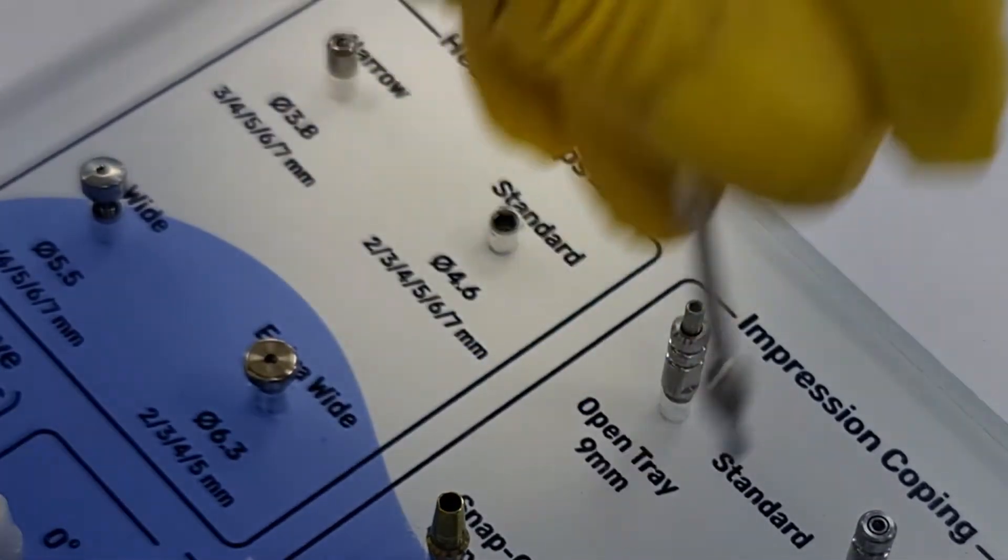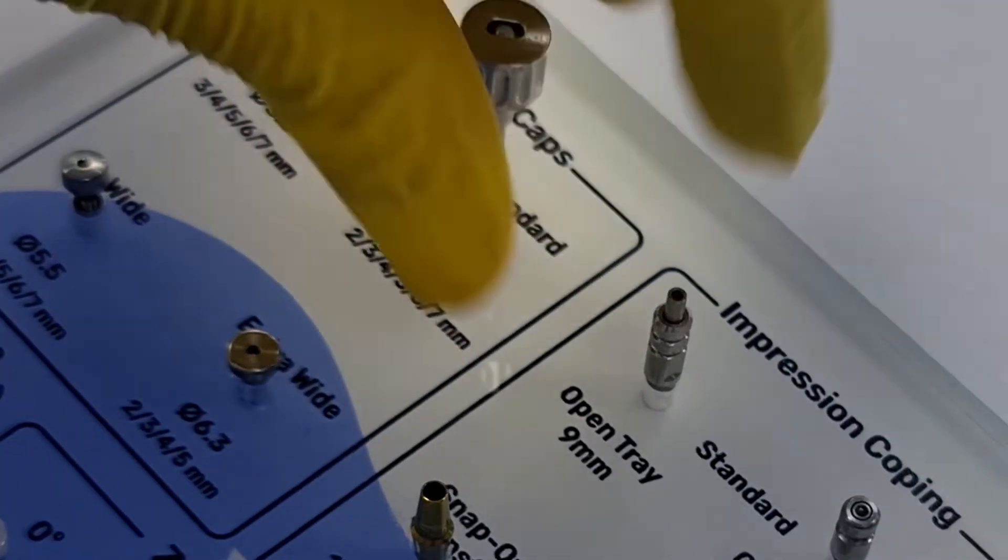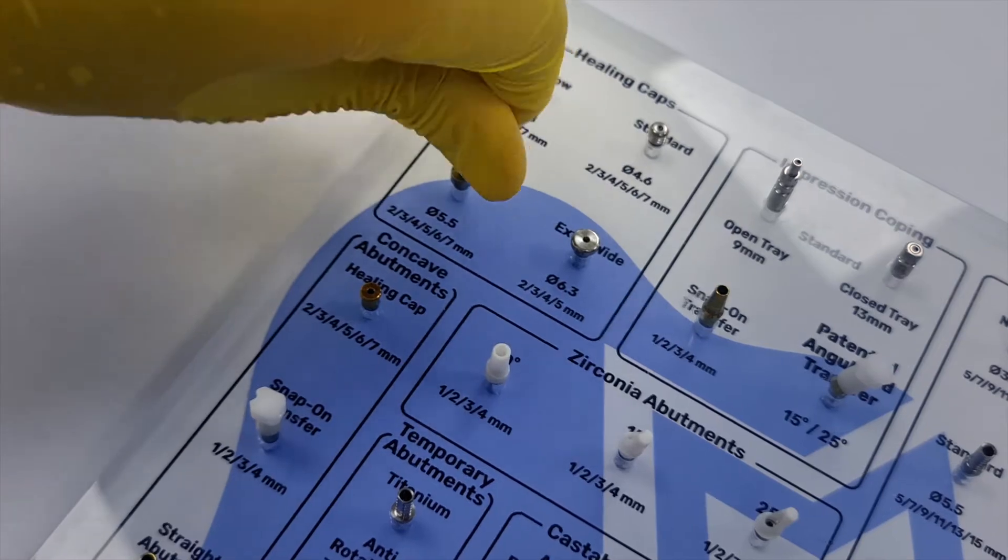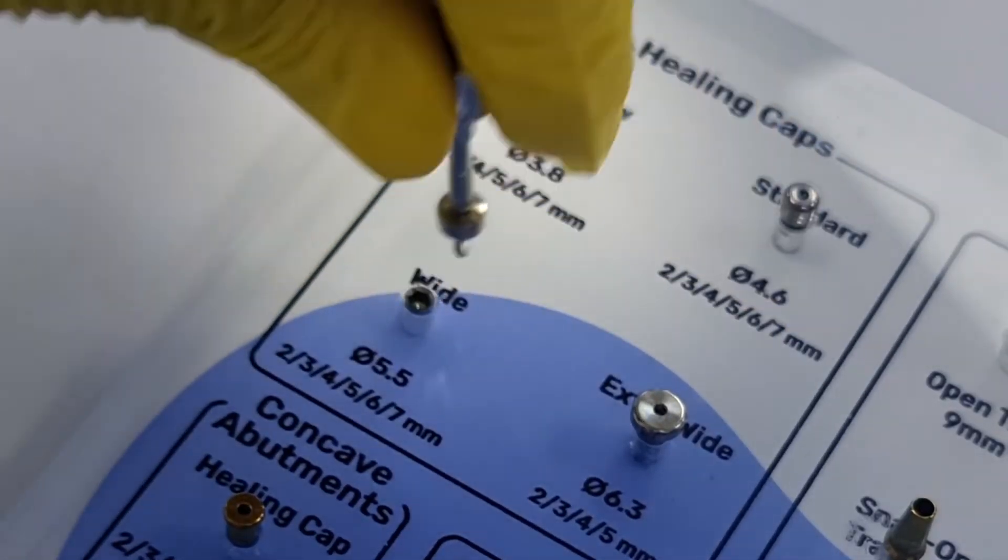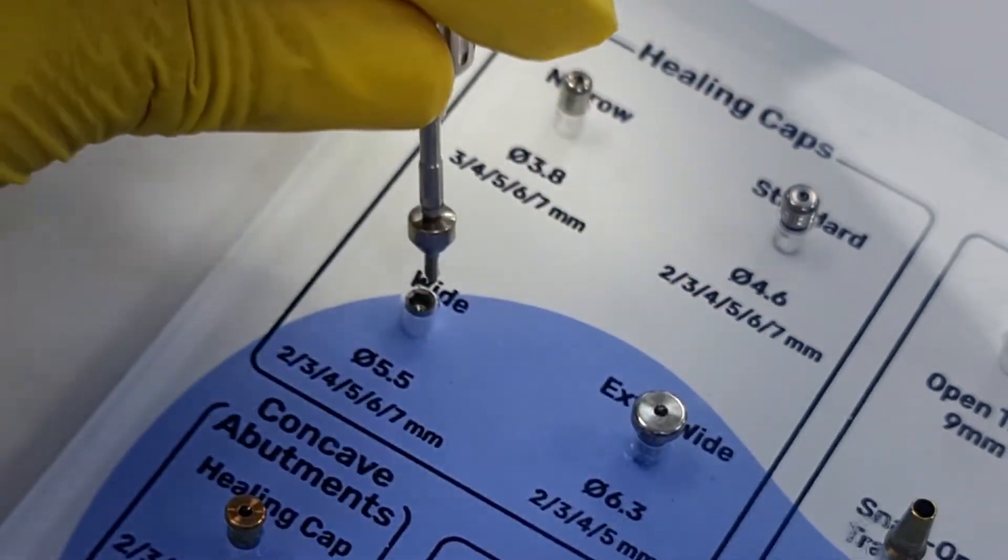No matter what you do, the part will stay connected until you torque it down. It can be used as a manual prosthetic driver with a super secure grip that will not let any part fall down.